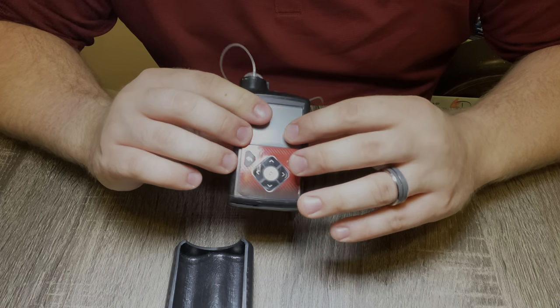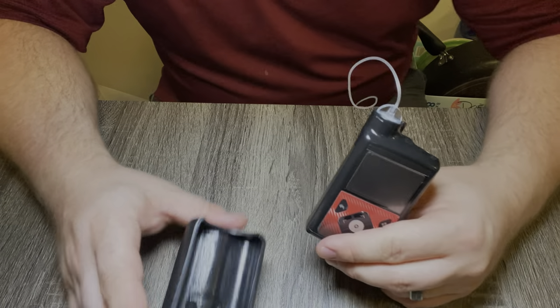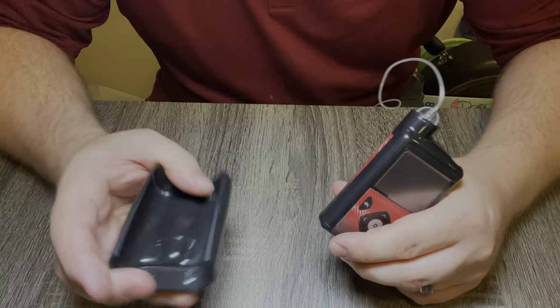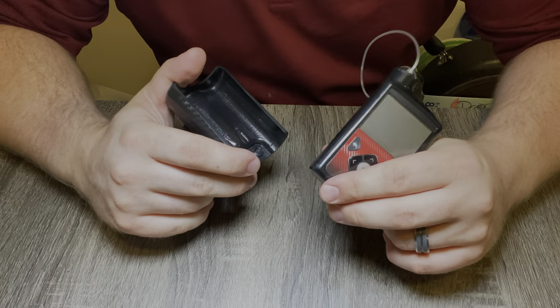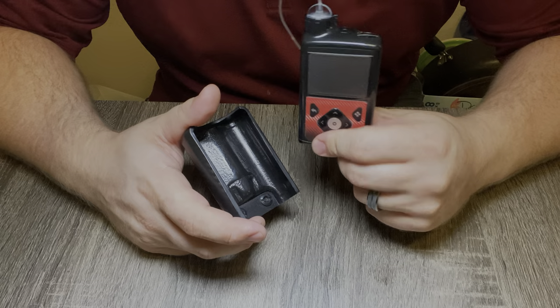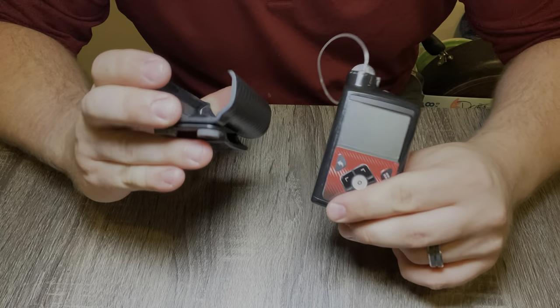Good evening, this is Jess here with Unbound Media and we are doing another kind of product review video — how I carry my insulin pump and keep it secure. I'm a pretty active person so keeping this $11,000 instrument protected is key. Without any further ado, let's jump in.